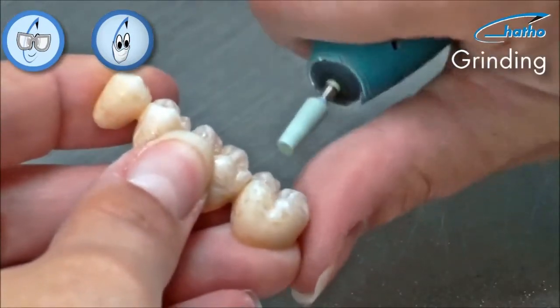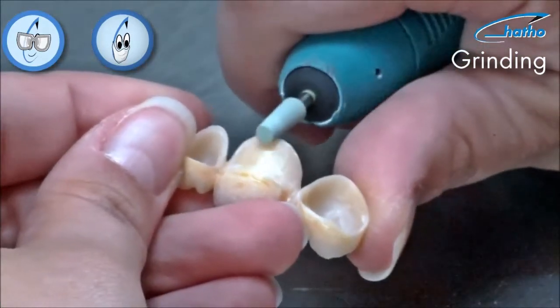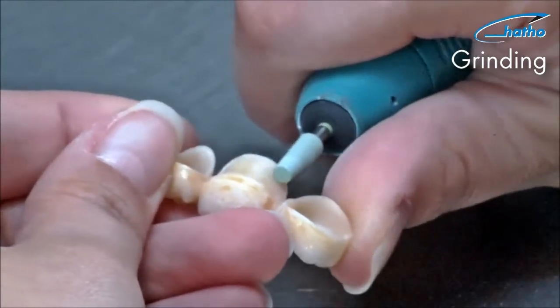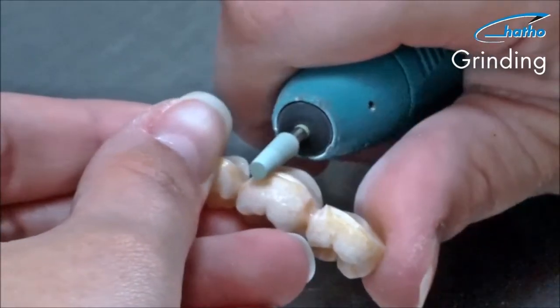The small conical shape of the diastone is the appropriate size for working on the occlusal surface. For basal surfaces one can use a cylinder or conical shaped diastone. All sharp edges and corners will be sanded down to avoid gum irritations.